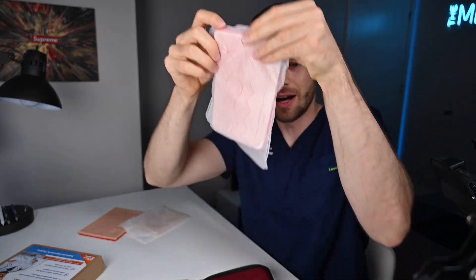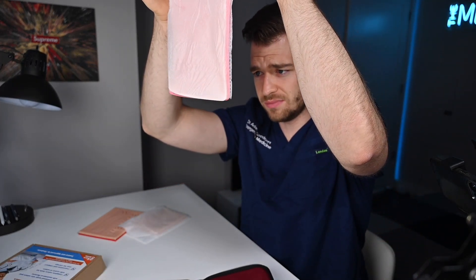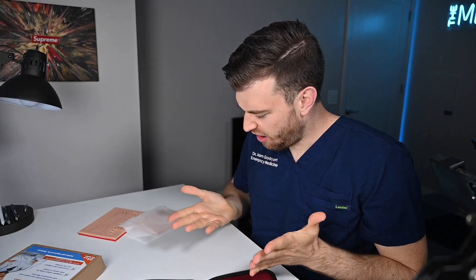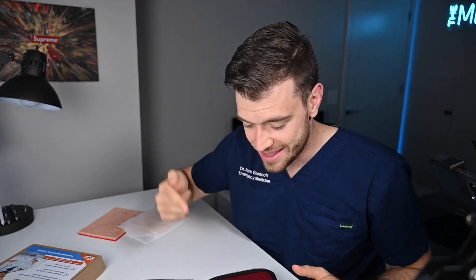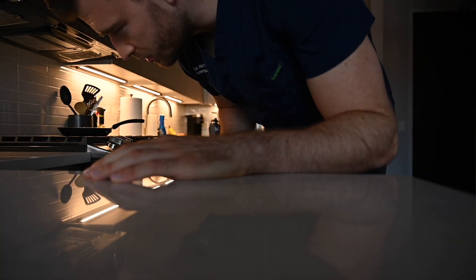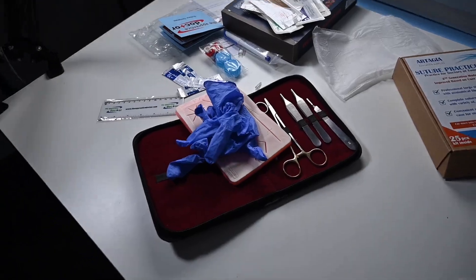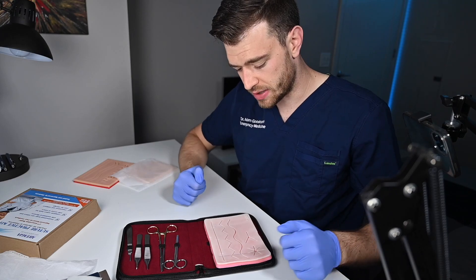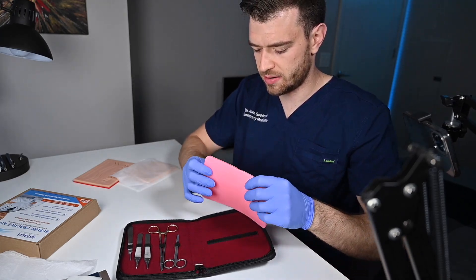Now to the actual money of the kit — there it is. First impression: I don't like grease. When I work on cars, motorcycles, bicycles, or patients, I wear gloves. This is greasy. I'm going to get gloves. This smells kind of gross — I think it's the releasing material or whatever they do, but I can touch it now and not be wigged out.